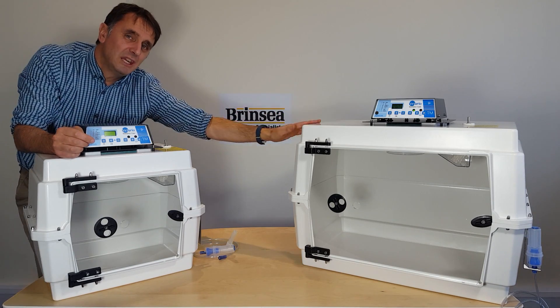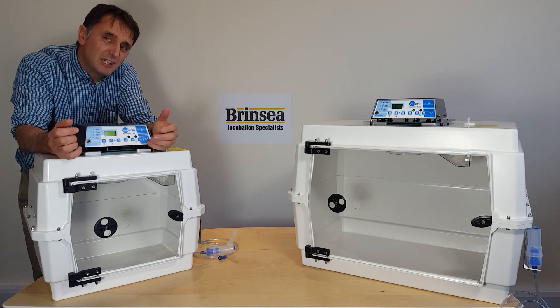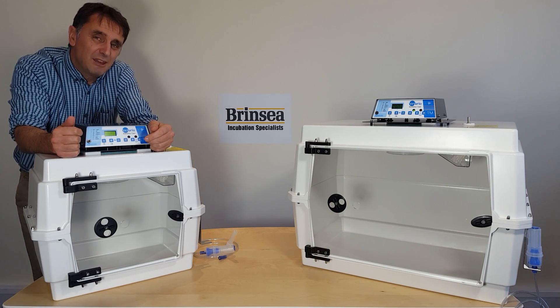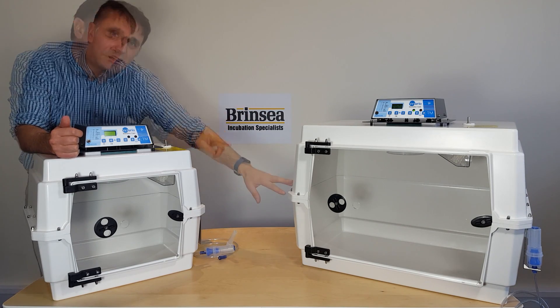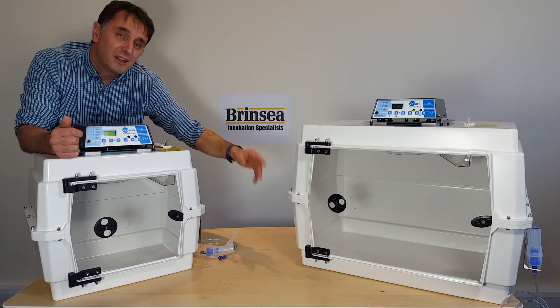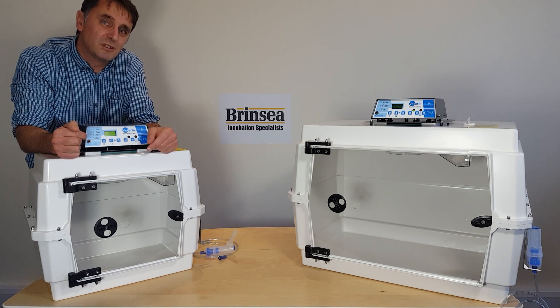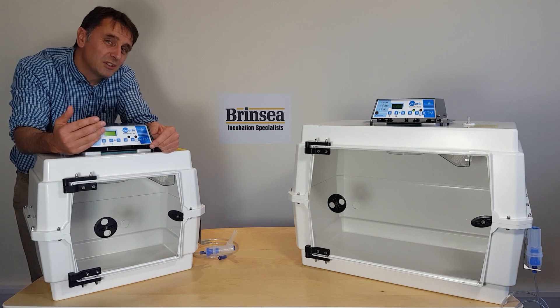The larger unit is the T50M. It has an effective 100-litre volume with a floor area of 60 centimetres width, a 40 centimetre depth, and a height of 56 centimetres. That will suit a small dog or a cat and her kittens.